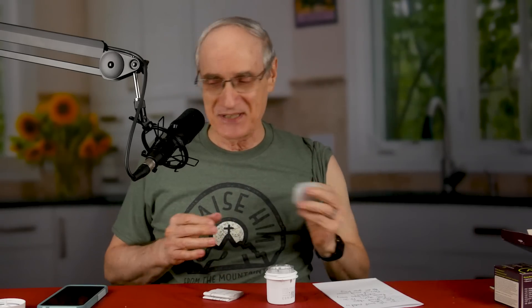Maybe Benedicta can help me. She has just volunteered — that's my sweetie, very helpful person. For me it'll take a couple of minutes; for you it'll take about a second. Benedicta helped me get that overpatch on. So we've got the sensor on and then the overpatch over that.